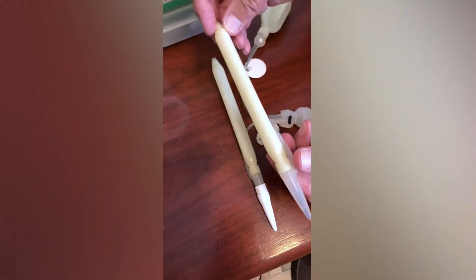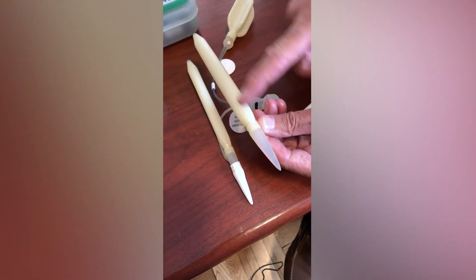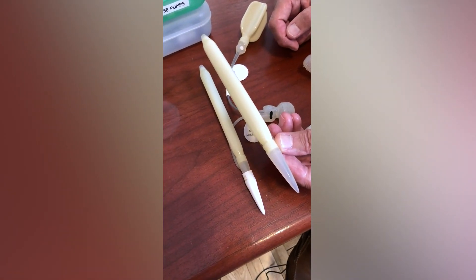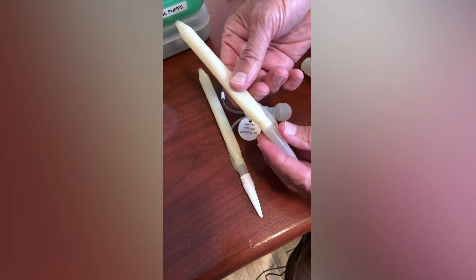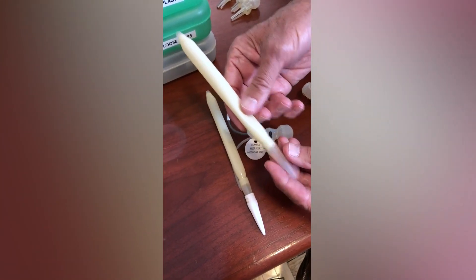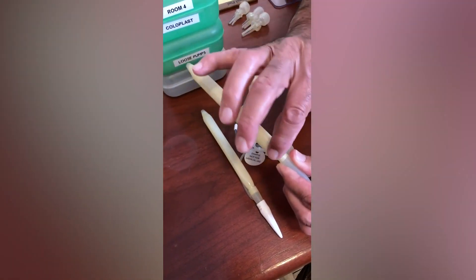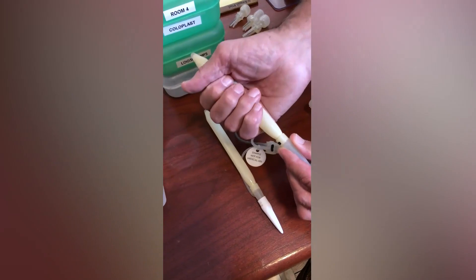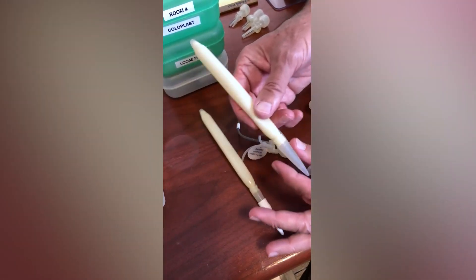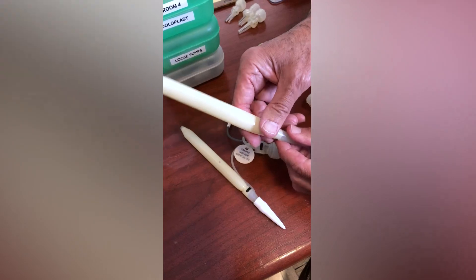When you look at a cylinder you might say this is an inflatable cylinder, but actually the back of the cylinder is non-inflatable. So if this is a 20 centimeter cylinder, 5 centimeters from the back of the device doesn't inflate. That's important because when this is introduced into the body it goes into what we call the crus — the part of the penis attached to the bone. In the beginning everything is tight, but over time scar tissue loosens up over the hard part while scar tissue doesn't loosen over the inflatable part. That's what makes an inflatable implant more rigid than a malleable implant, because it's always hard. When the scar tissue loosens up, the penis can start to wobble and the erection may not point up but instead downward.